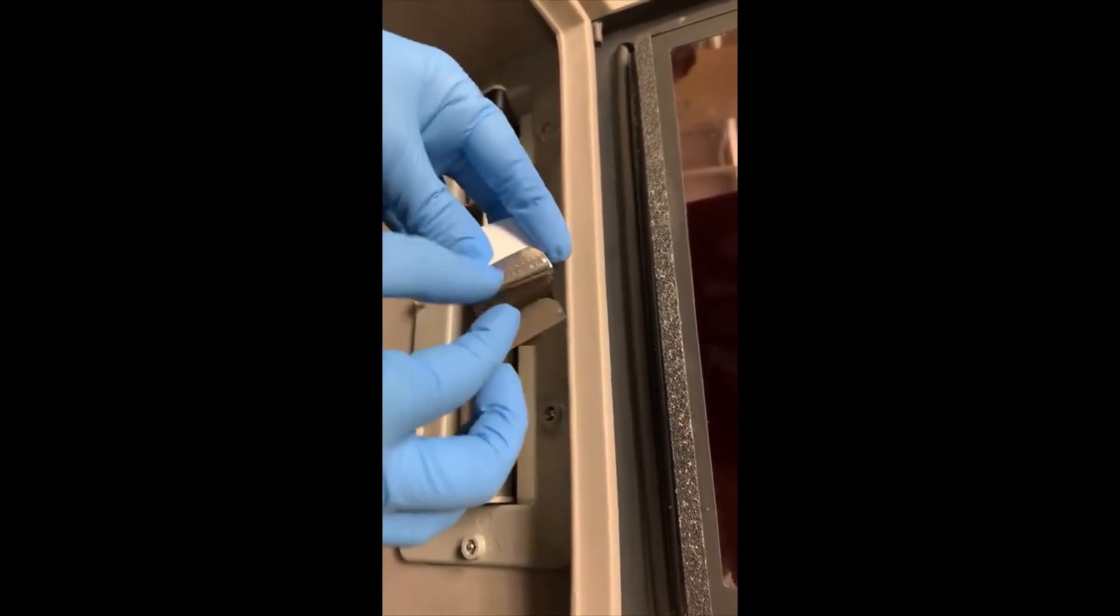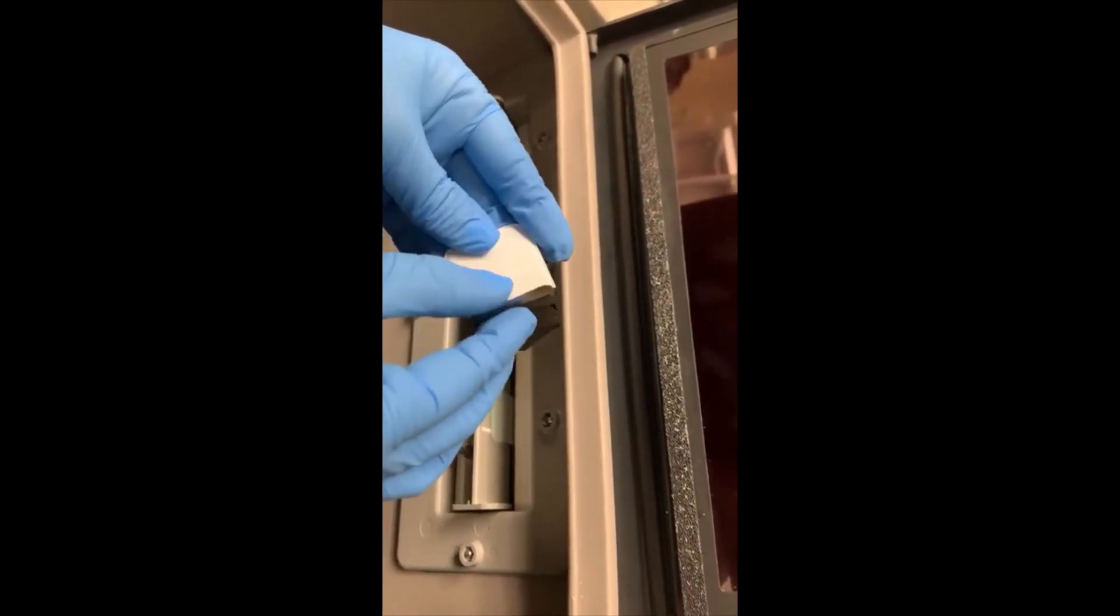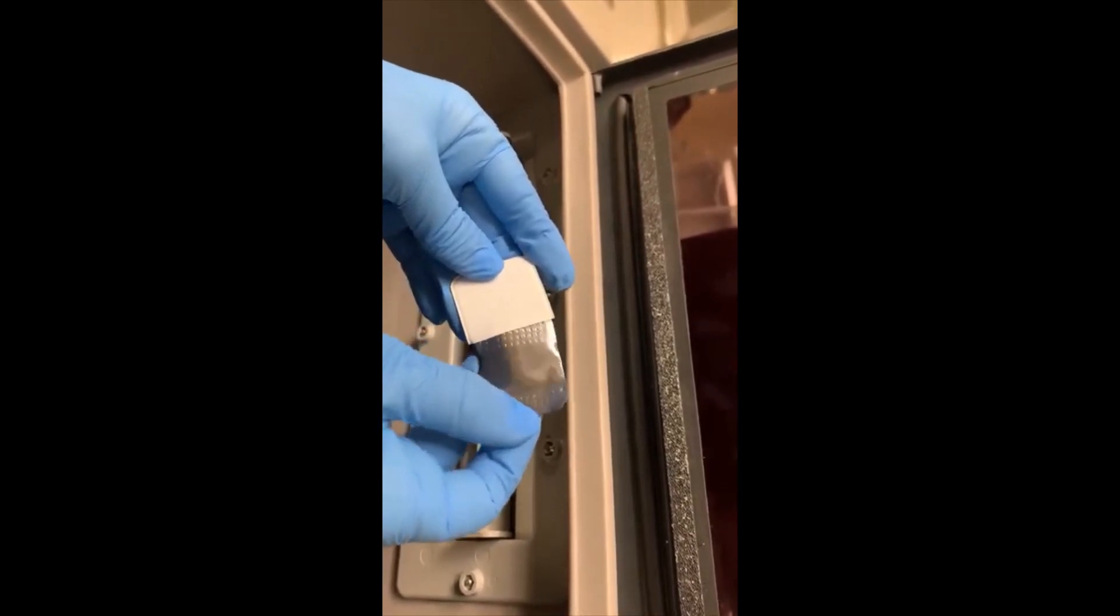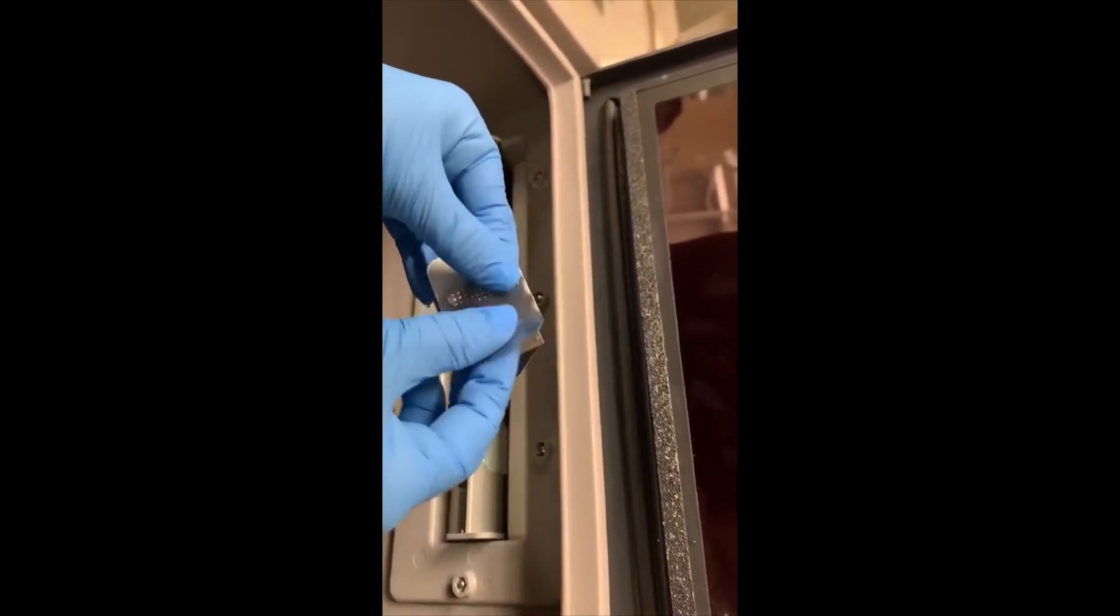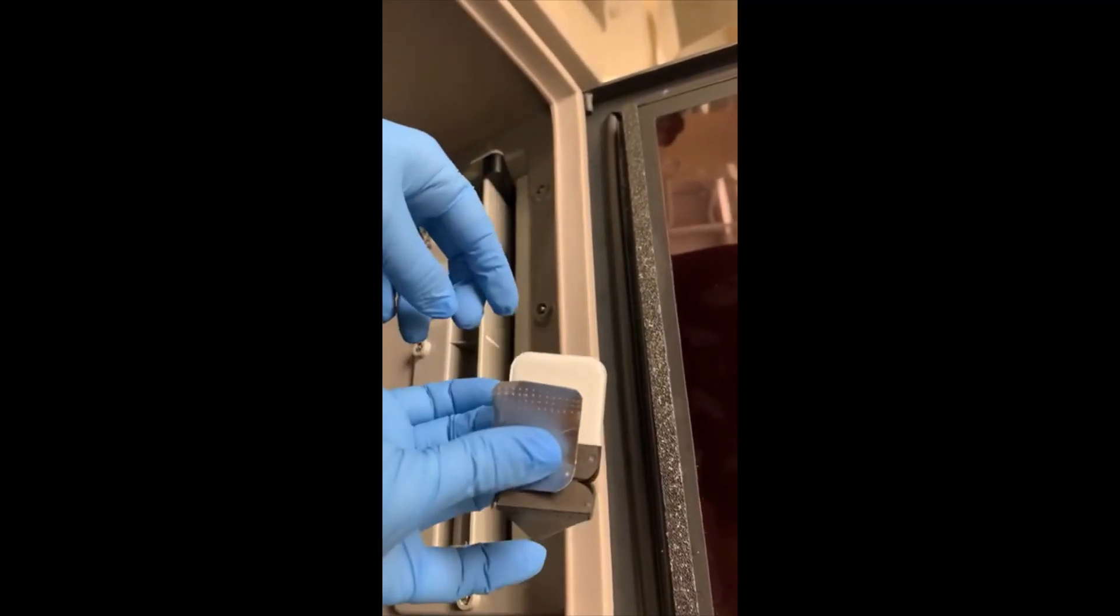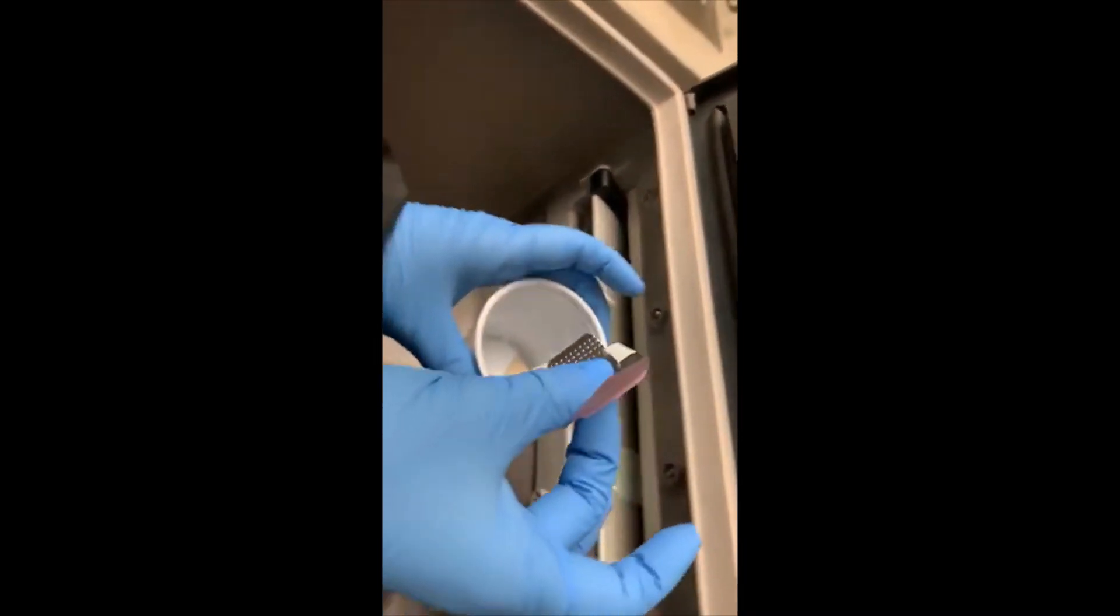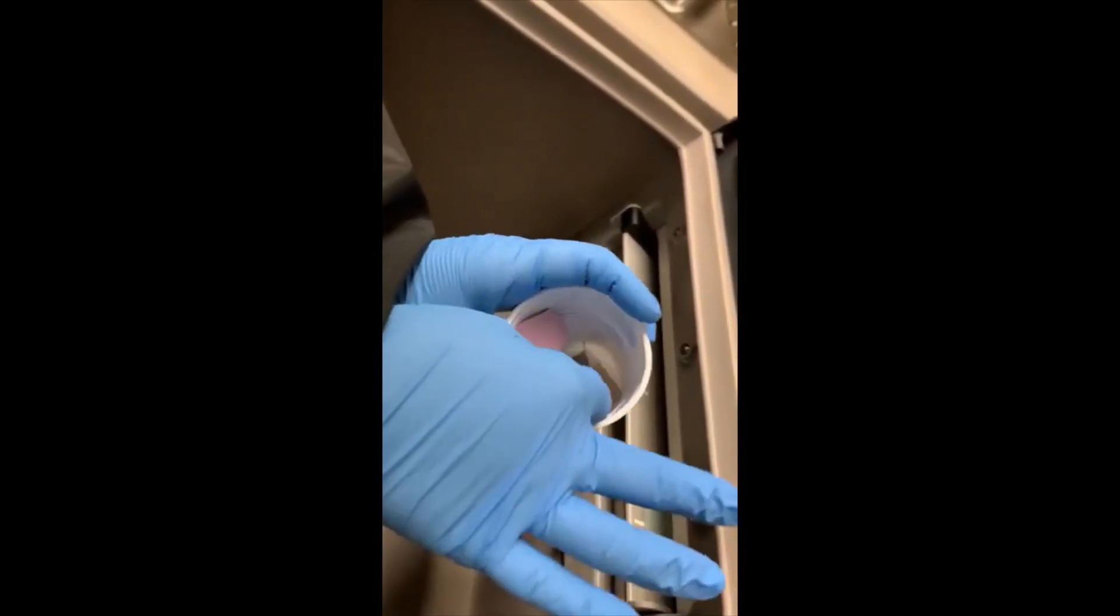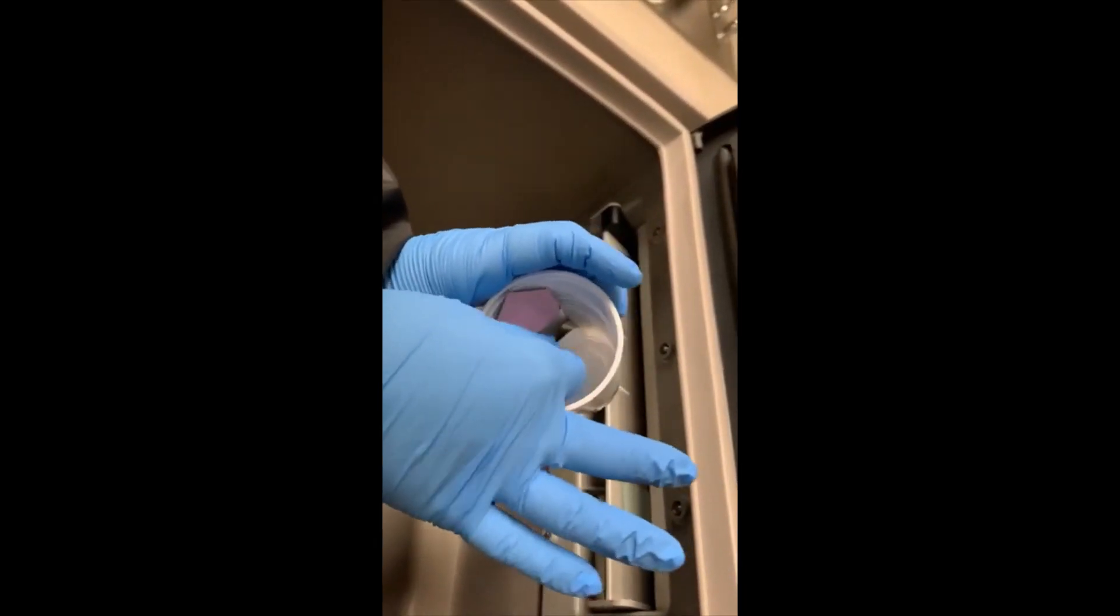With the rest of this film packet here, you're gonna pull out the lead foil, and this whole thing right here is garbage. So you'll just put all of your garbage right back into this cup and you'll grab the next piece of film.